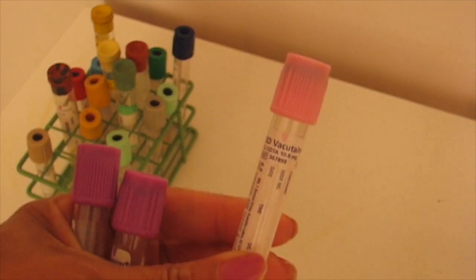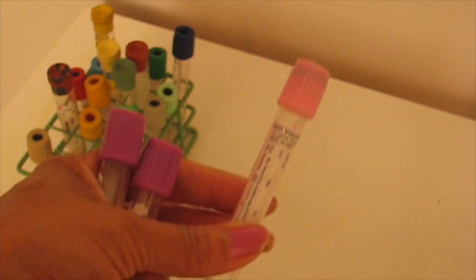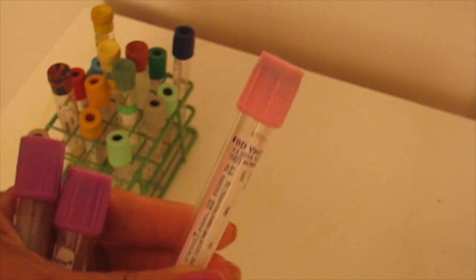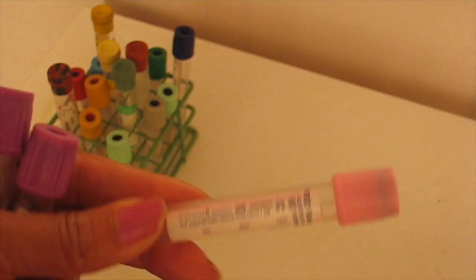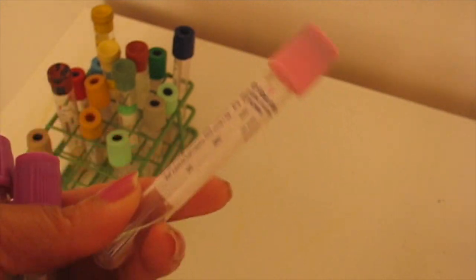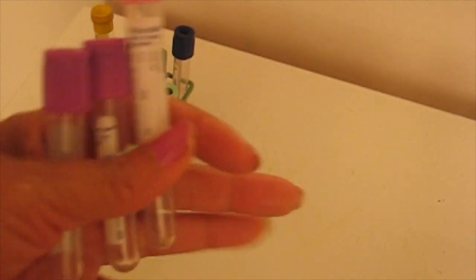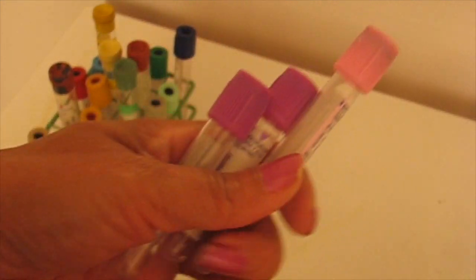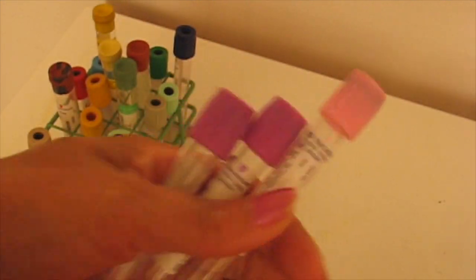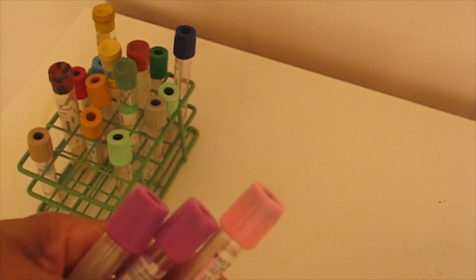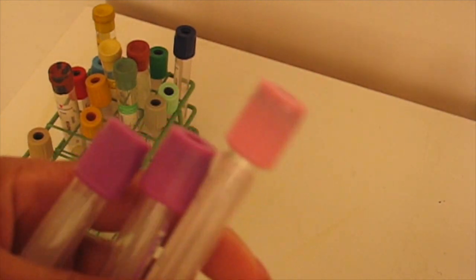Your pink top, for us we mostly use this test for blood bank, that's its primary purpose, but we will collect other tests in it as well, but not a lead specimen. I hope that answers your question.